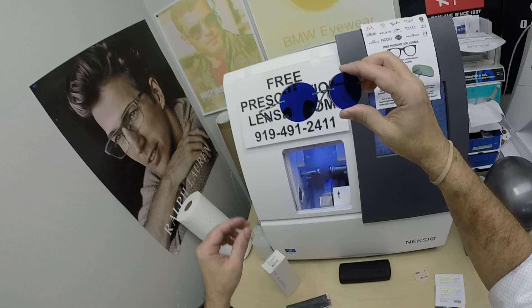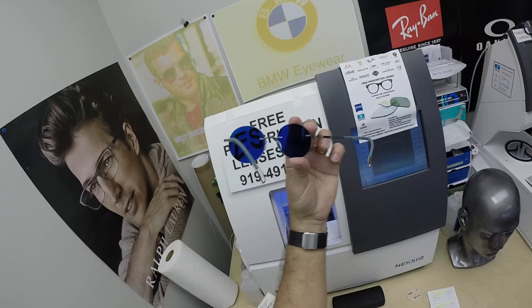Look at that — how cool is that? Steve Jobs with your round lenses. There you go. Now the other thing about photochromic lenses is they're temperature sensitive.